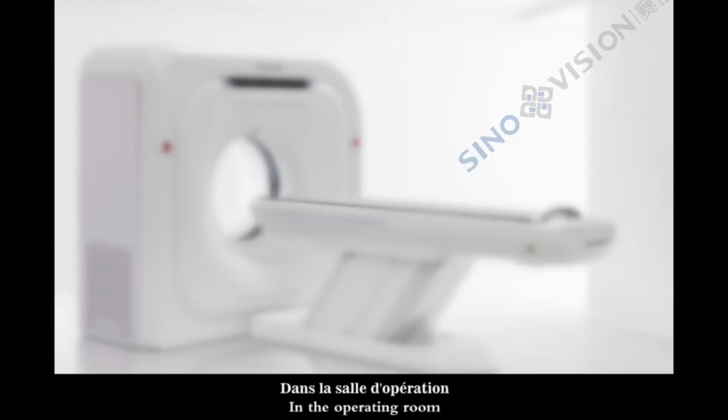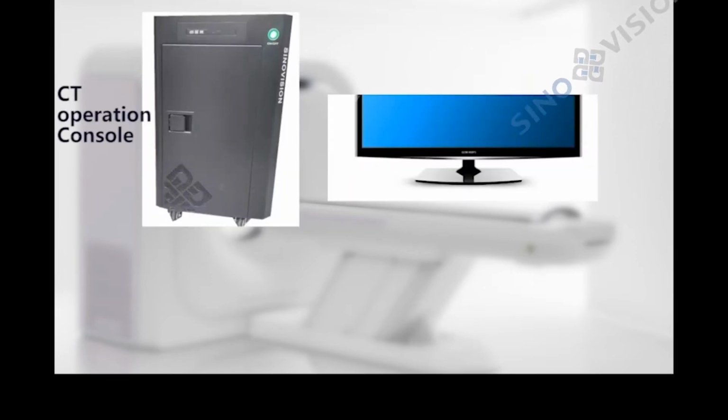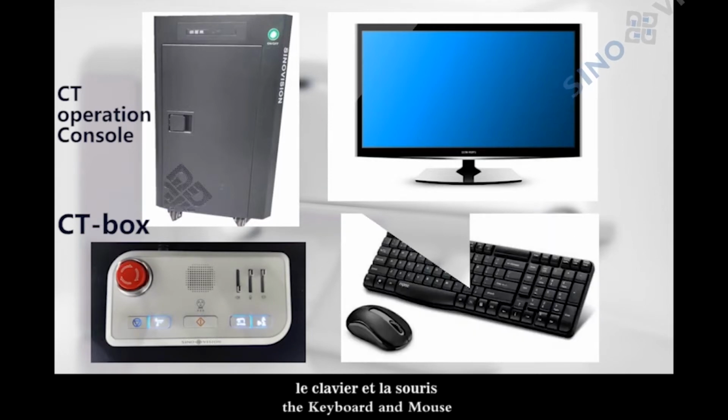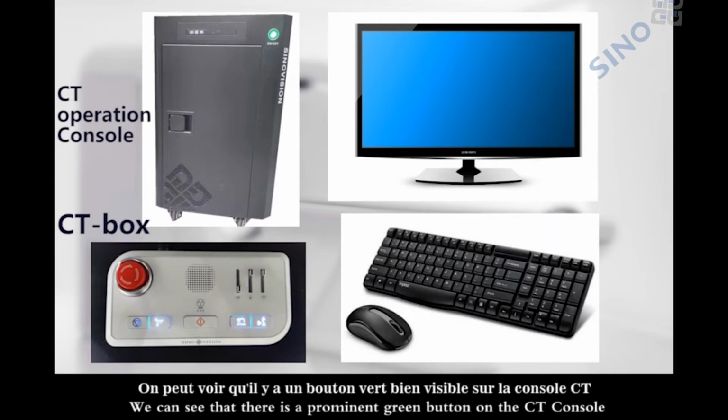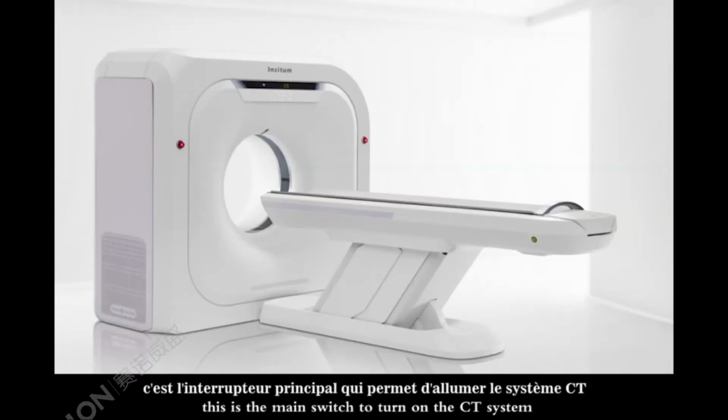In the operating room, we can see the CT operation console, monitor, the CT box, the keyboard and mouse. We can see that there is a prominent green button on the CT console. This is the main switch to turn on the CT system.